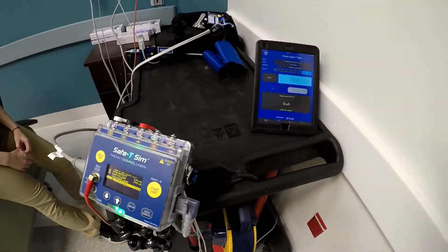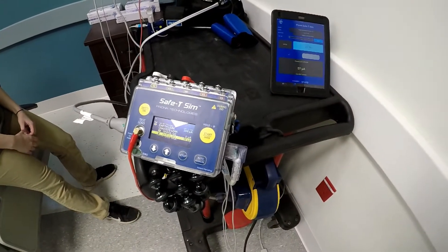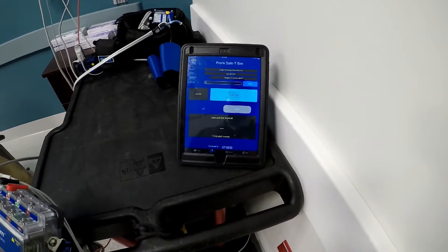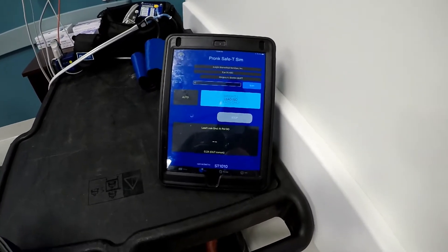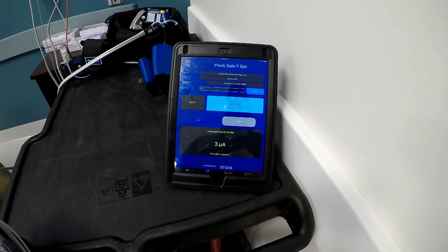At the end of this test you will be able to export the data into whatever format you want. You can email the PDF, simply email the results, or copy and paste into any other application that you're working with, which really is impressive.